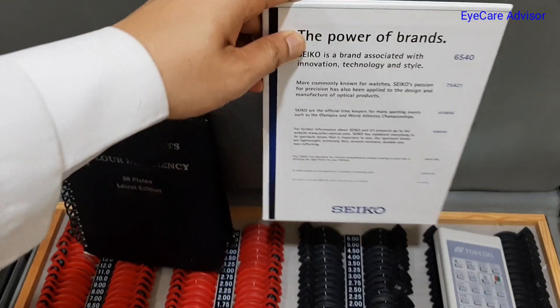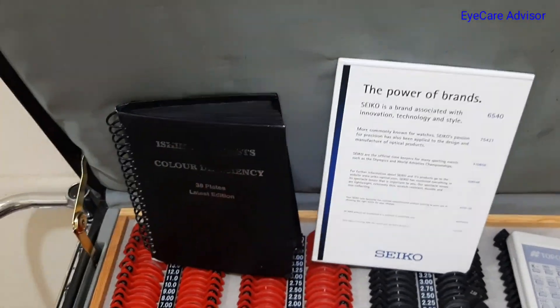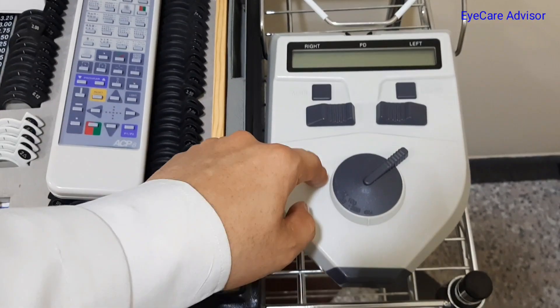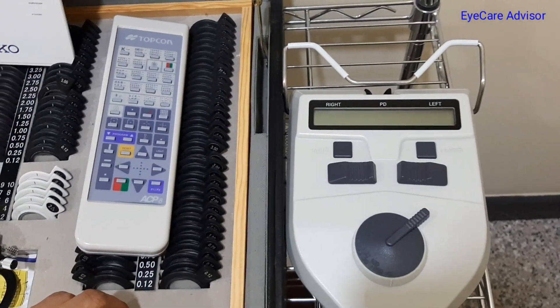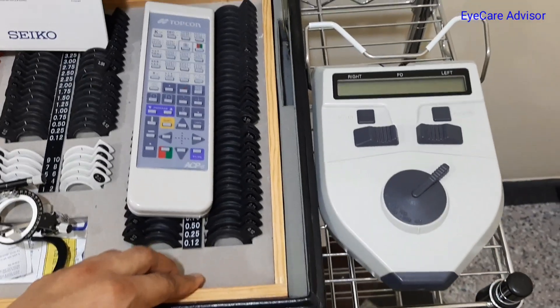There is also a reading chart. Apart from this, beside it I have the pupilometer for checking the IPD, which is very important. Now I will show you the chair unit.